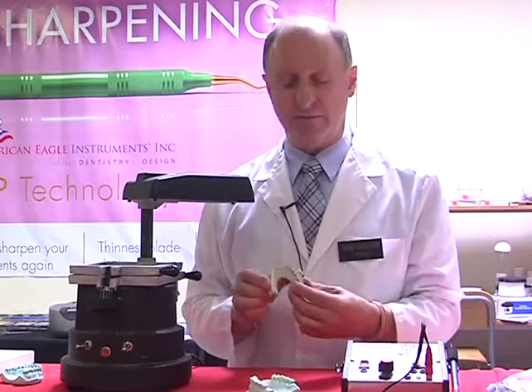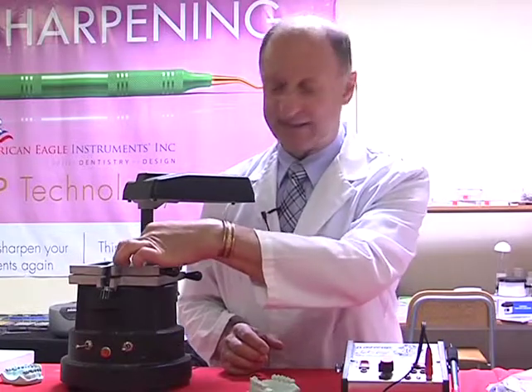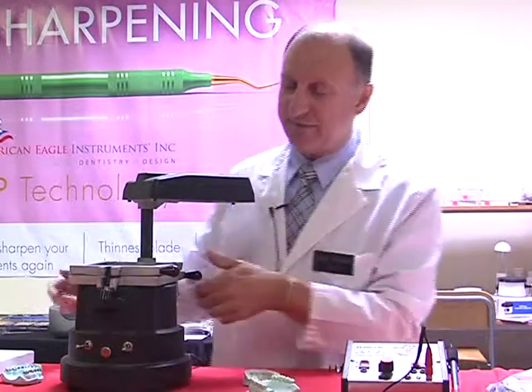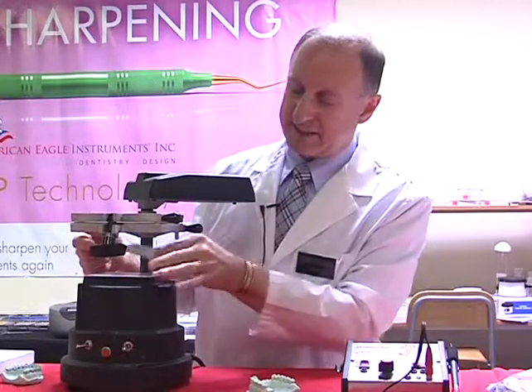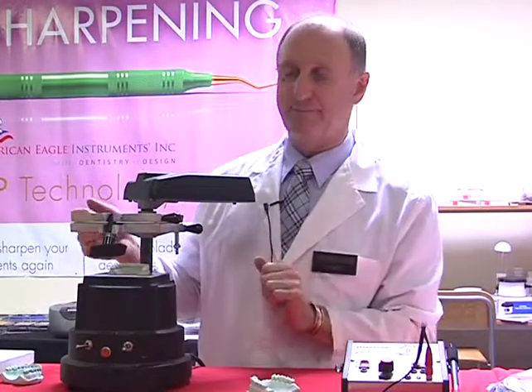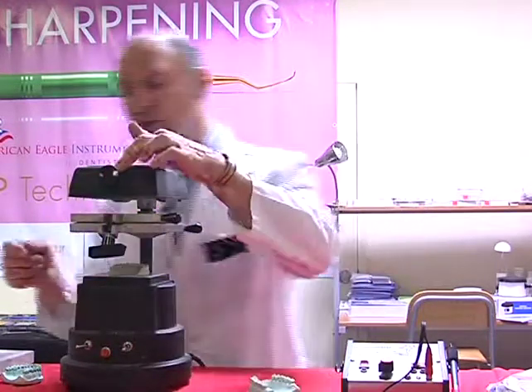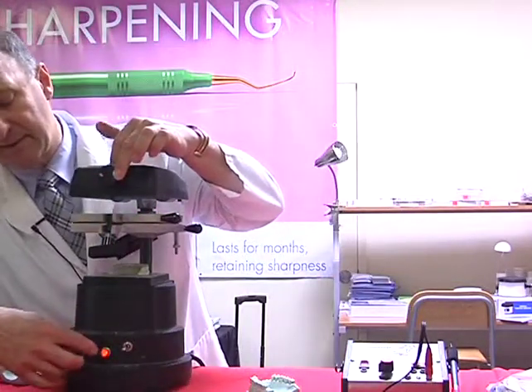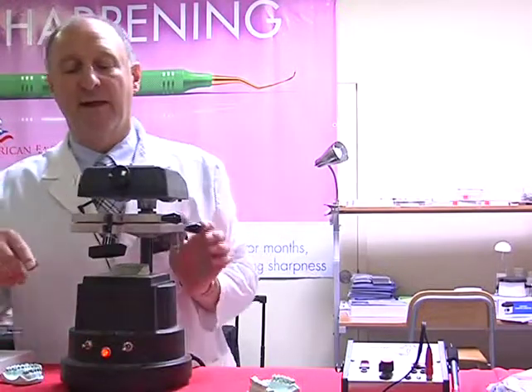I'm now ready to vacuum form, so what I'm going to do is place my model centrally onto the table, like so. Let's lift this up first, and then place this centrally onto the table. I then swing over my heater, making sure that I turn on my heater. The light comes on the system telling me that it's heating.